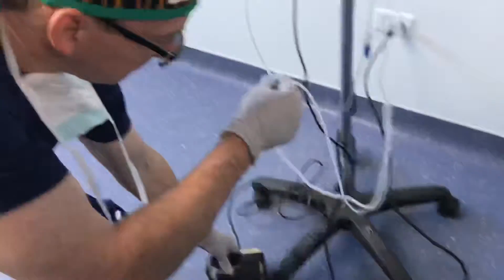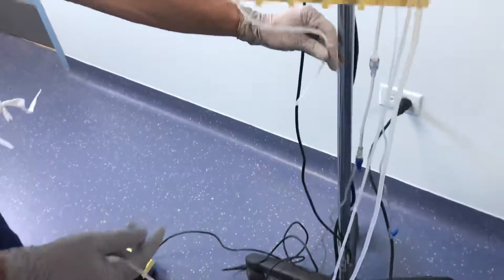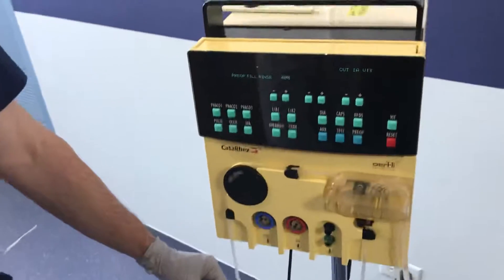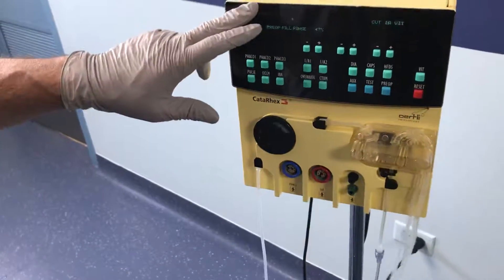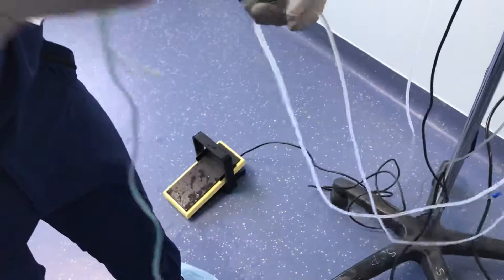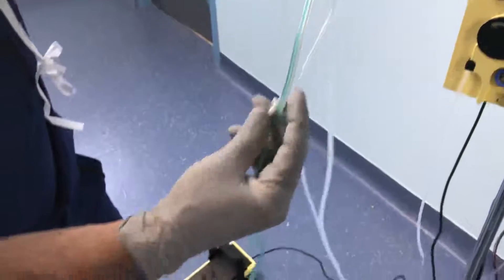You don't want to drip all over the floor, so we usually tape a little plastic bag to the side of it here, or a bucket — a kick bucket — you can put underneath. That's just the effluent. When it's done, one of these is irrigation and one of them is aspiration. This is the non-sterilizable instrument, the vitrectomy itself — it's disposable, so a little bit more expensive.